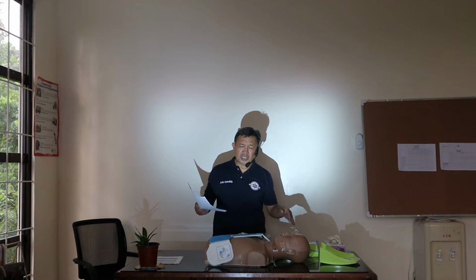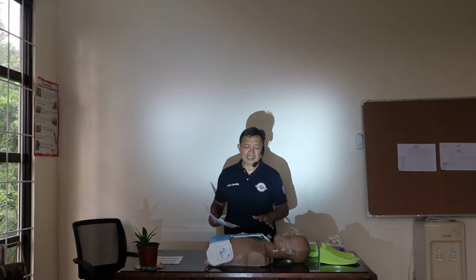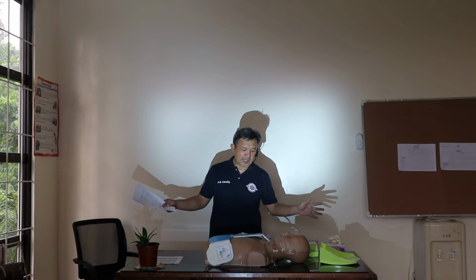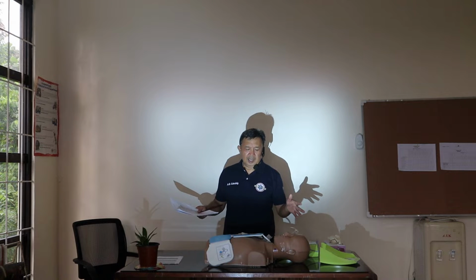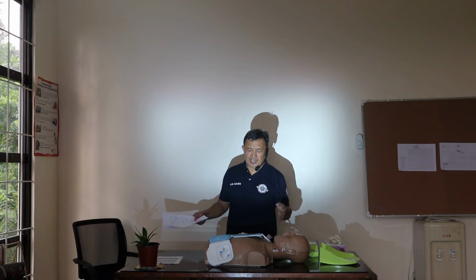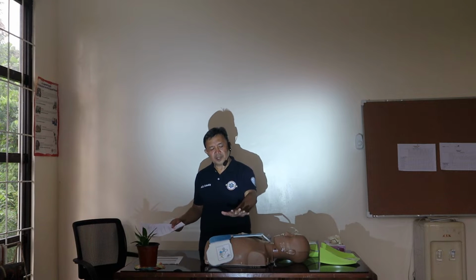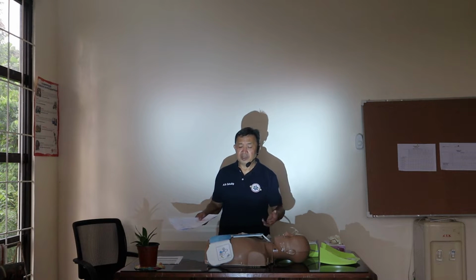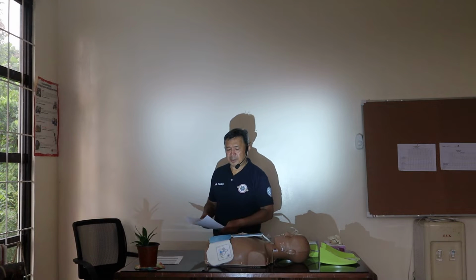There are AEDs with no push button, so it delivers automatically. Once you put on the AED, nobody should touch the patient. The AED will advise if it's clear, then push the button. When completed, the AED will advise you to perform CPR, or if the patient has a pulse or breathing, put them in the recovery position. So that's it. That's very simple.